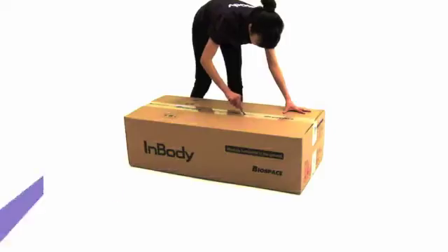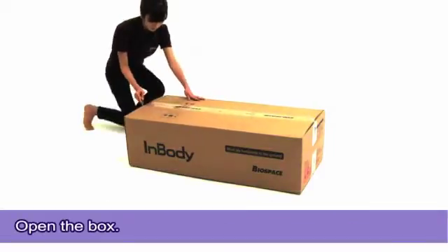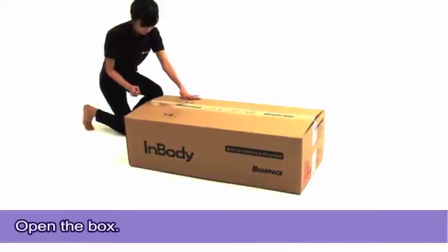Step 1: InBody Installation. Opening the box. Using a knife or box cutter, carefully cut the box to open.